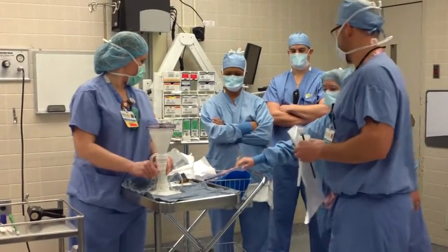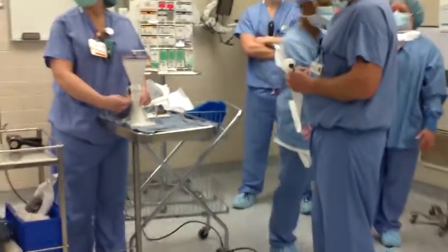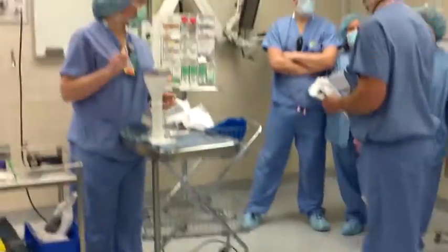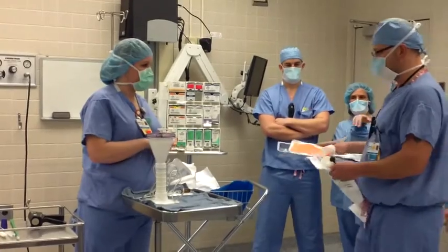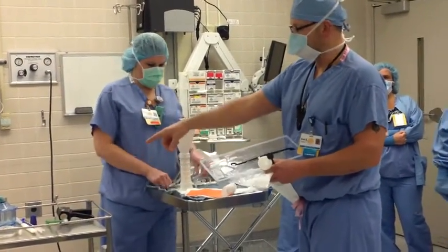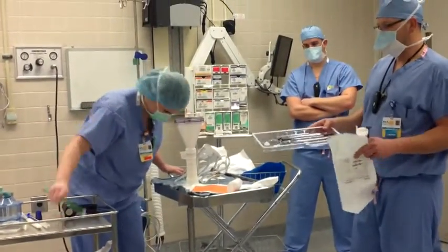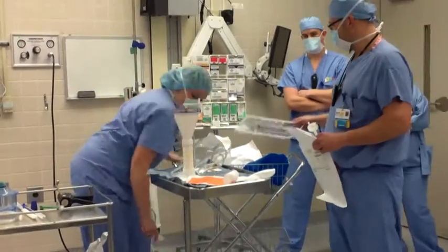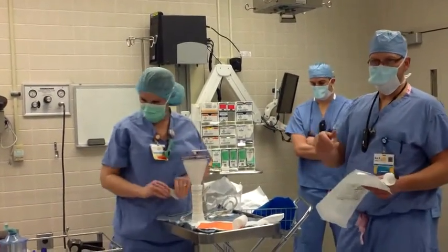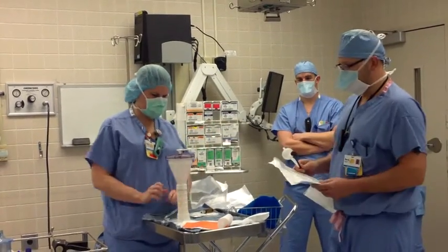Nurses, make sure when people are opening it, please make sure you don't throw this away because the nurses are having to dumpster dive for this and it's not fun. The reason why is there's two cement plugs in here — a large plastic one and a small plastic one. She's already pulled out the small one, and there are other different things we'll use. You won't know until the doctor sizes the femur distally to see which one you're going to use. So you'll need that kit.